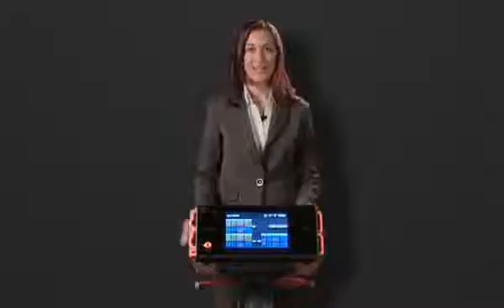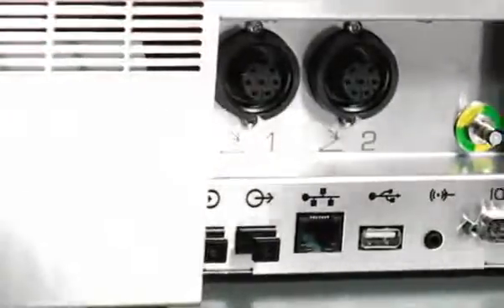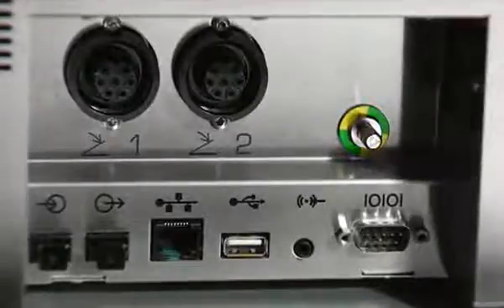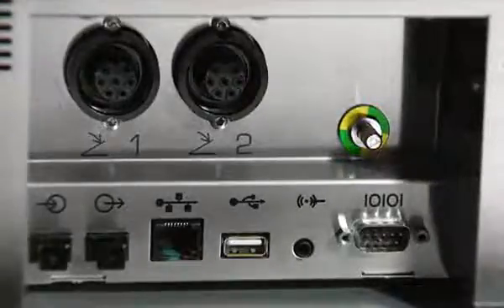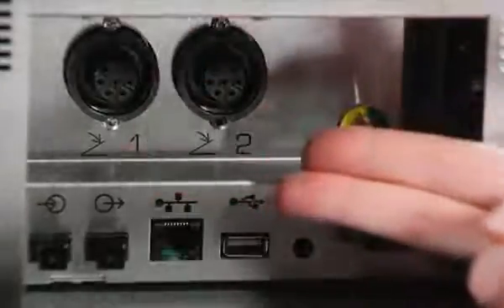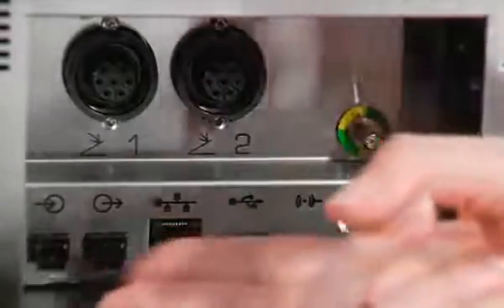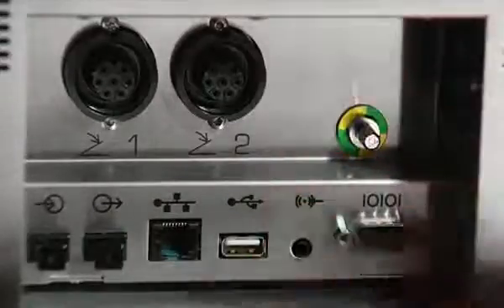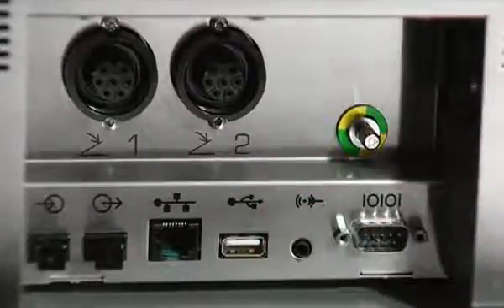First, let's take a look at the ARC 400 connection options. There are various connection ports on the reverse side of the ARC 400, which will ensure optimum networking conditions, investment security, and easy servicing. They include two connections for foot switches, several standard ports, as well as a USB connection, which can be used to load software updates.